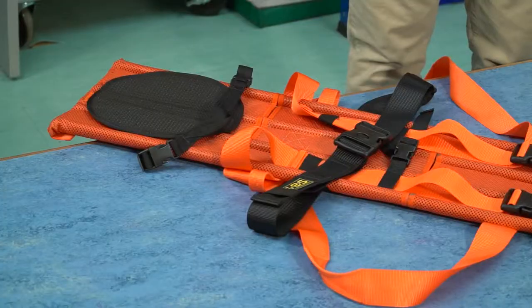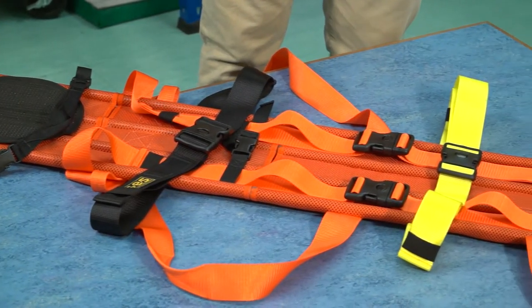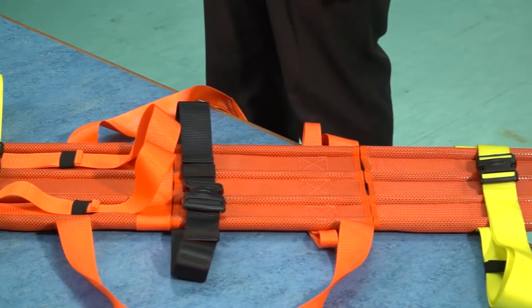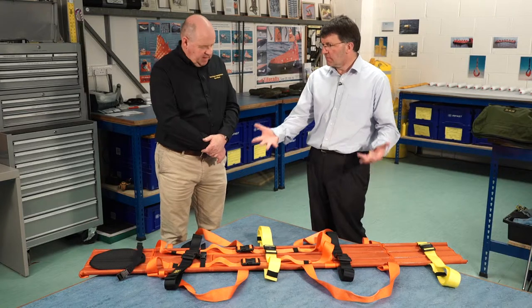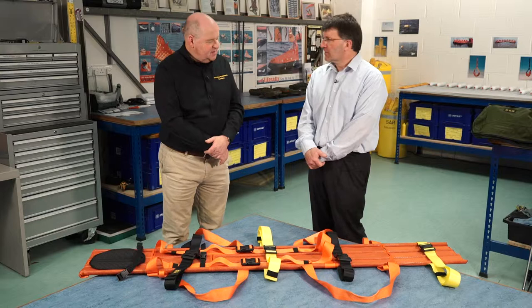The main body is made of a mesh, which has plastic inserts, and then we have carbon fibre rods, which is extremely strong. This is what makes it lightweight and compact, and we've tested this up to 250 kilos. So 250 kilos is the weight it can withstand — I don't think there are any humans who are heavier than that. No, not at all.